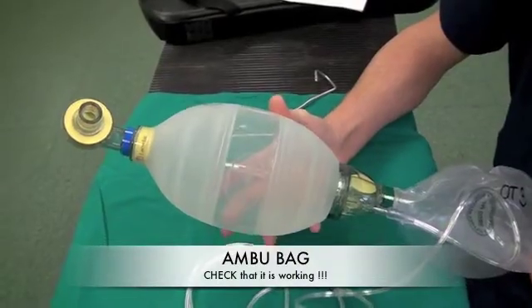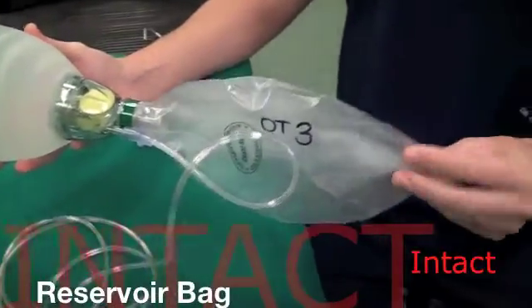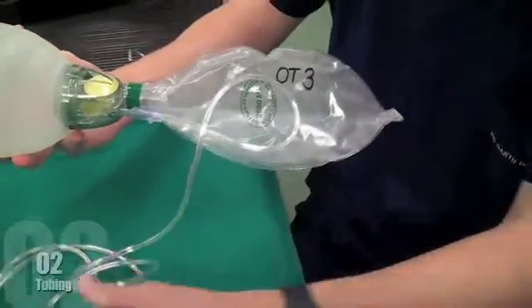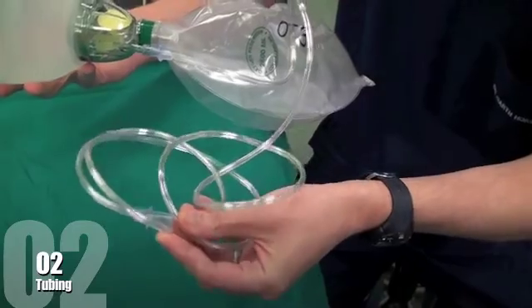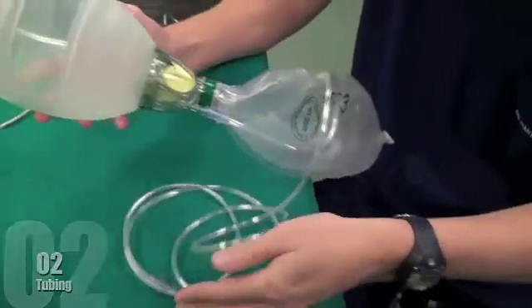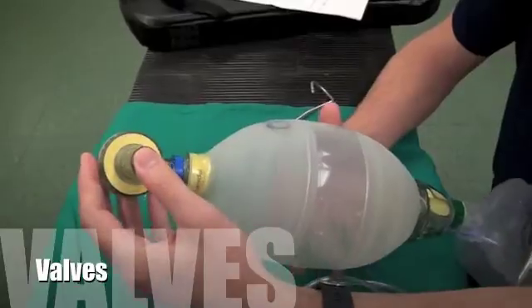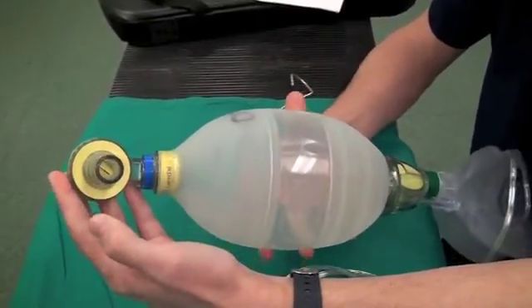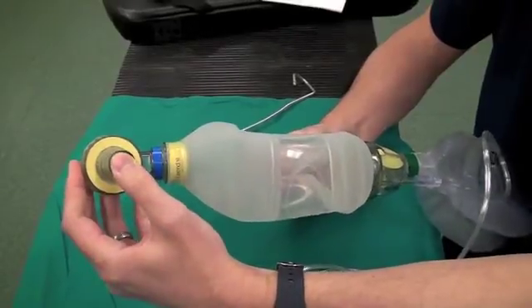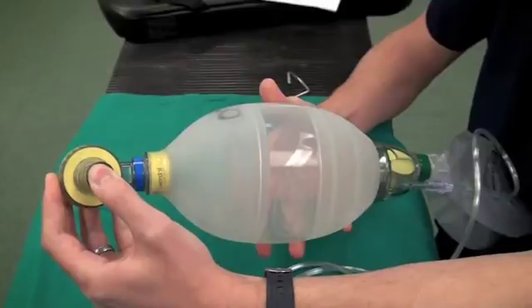One needs to check that the ambu bag is working. This includes checking the reservoir bag, ensuring that one has oxygen tubing to connect to your oxygen source, and checking the valves of the ambu bag. This can be done by squeezing the bag against resistance, then emptying the bag, and ensuring the bag fills up even when it is closed. And that's it.